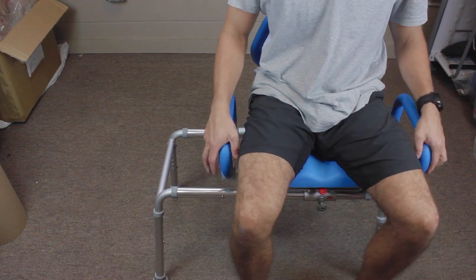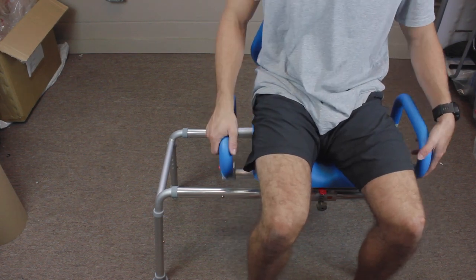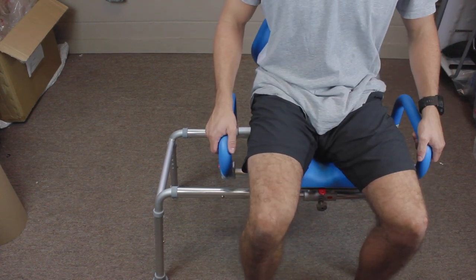Each arm will lock and unlock respectively, allowing for easier access getting in and out of the chair.